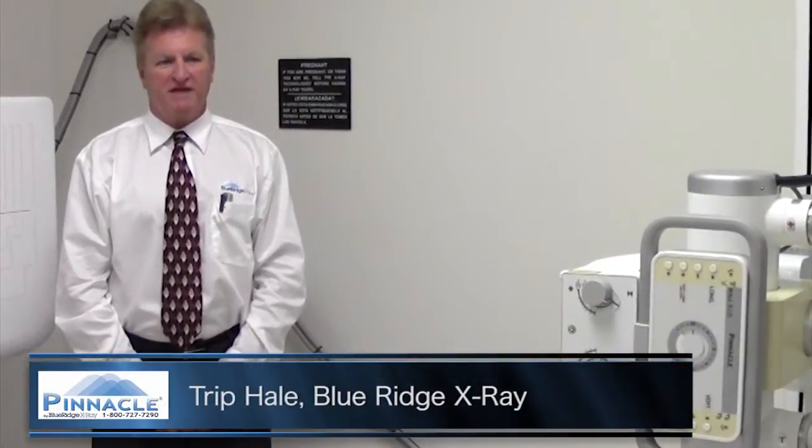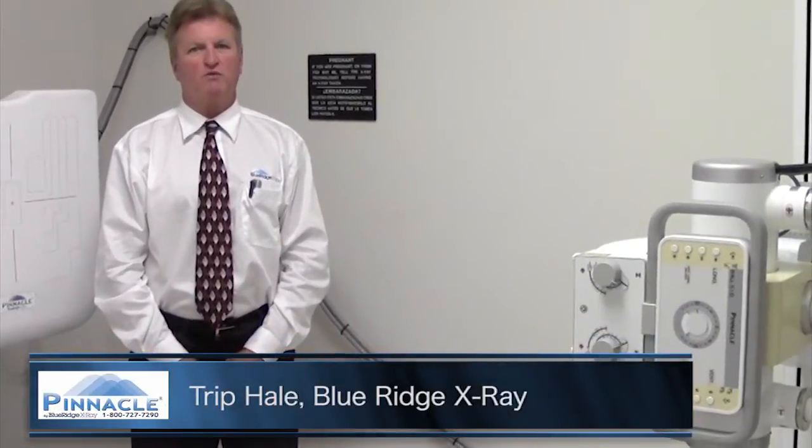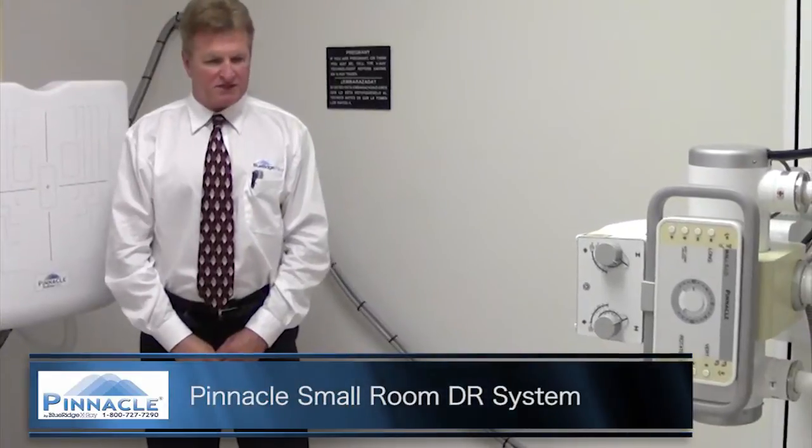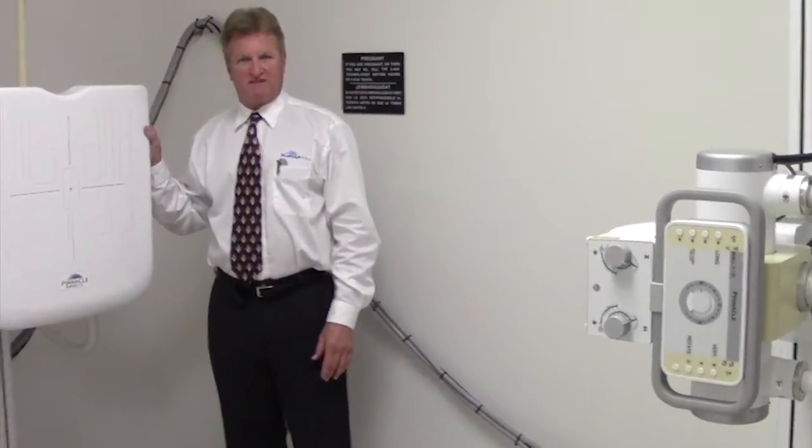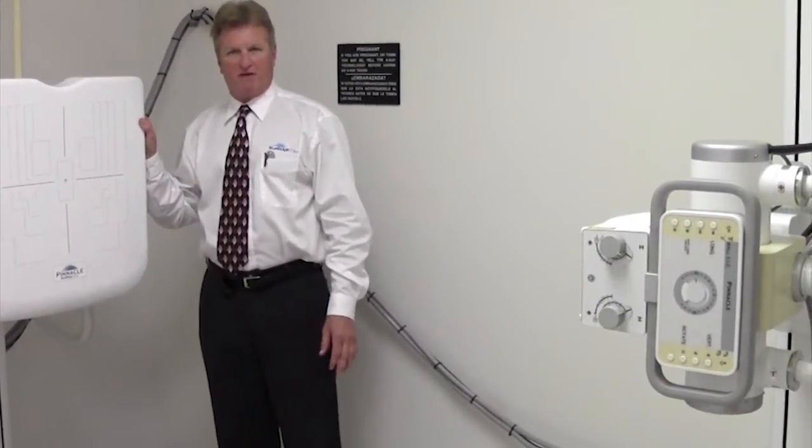Hi, this is Trip Hale with Blue Ridge X-Ray and I'm here to demonstrate our Pinnacle Small Room DR system. This configuration is a DR with a 17x17 state-of-the-art TFT panel.